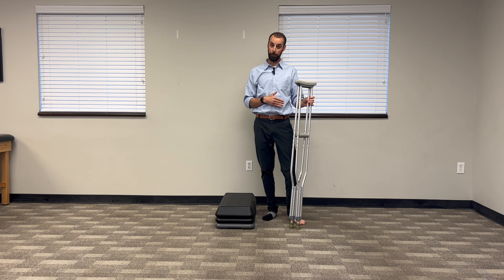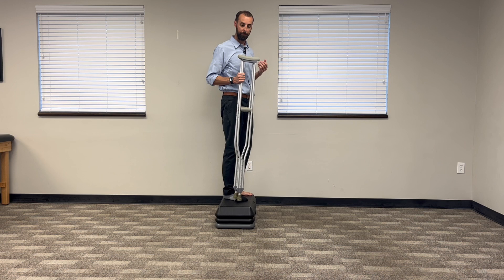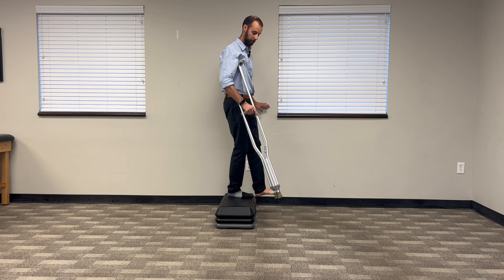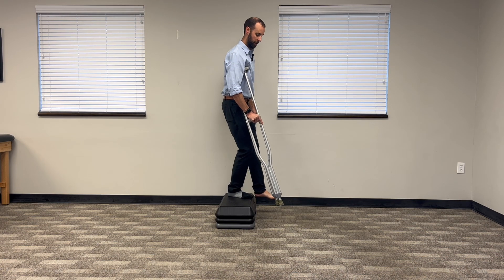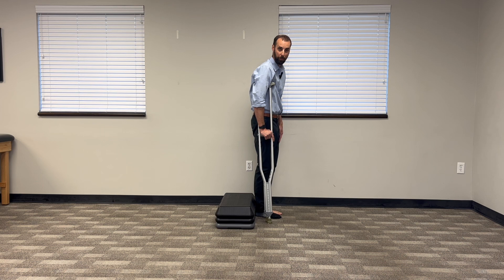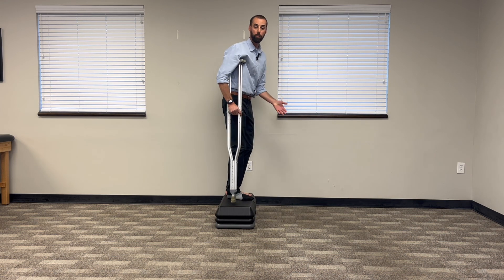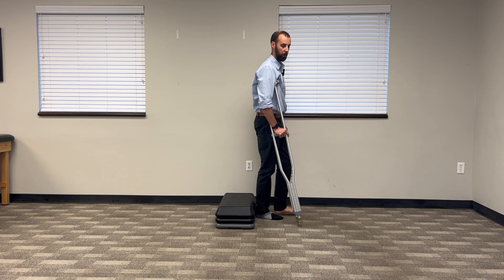But how do you get back down? It's a similar thing. Down with the bad — this is where it gets a little confusing. Do you think going down with the bad foot means that's going to do most of the work? When I reach down with the bad foot, my crutches come down at the exact same time, and notice what leg is doing all the work to squat me down — it's all on my good leg. Then all I have to do is put the bad foot down with the crutches, take as much weight as I need through the crutch, and bring the other foot down. That's why you go down with the bad leg first. If I were to step down with my good leg first, my injured leg would have to do all the work and that wouldn't feel good. Down with the bad allows the good leg to do all the work, and then you just go slowly one step at a time.